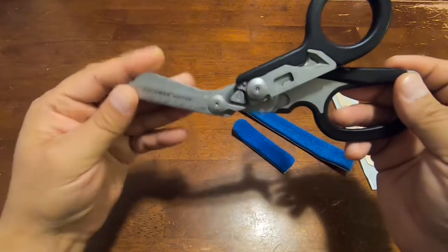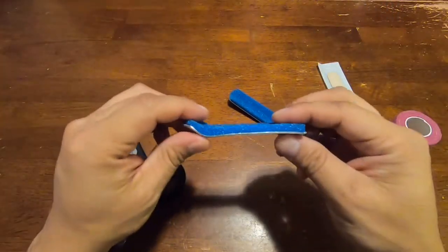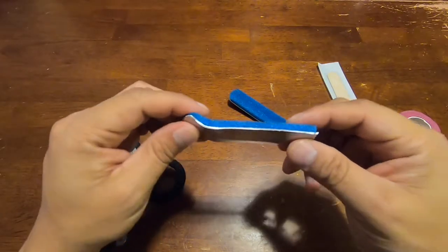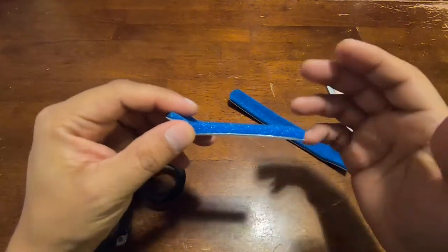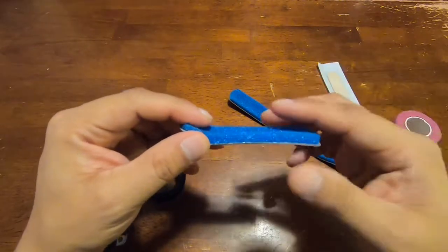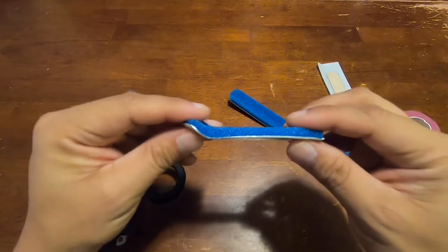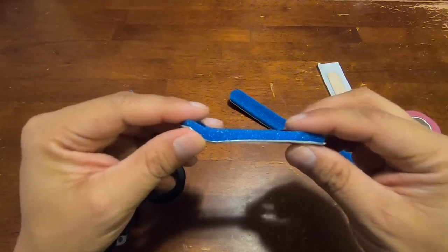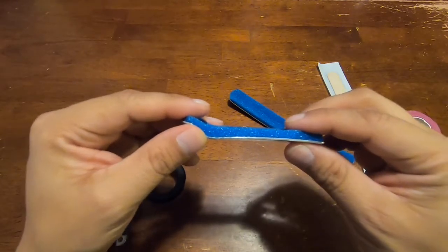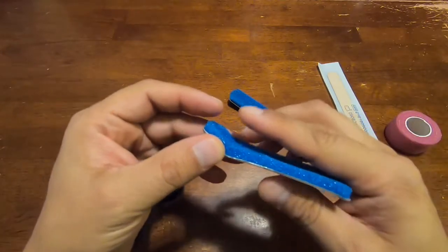So to begin, I'll just start with this one. Whenever you injure your finger and you're looking for a splint, something to splint with until you get more appropriate care, what you want to do is make sure that it's comfortable and it doesn't cause any more injury, damage, and possible infection.